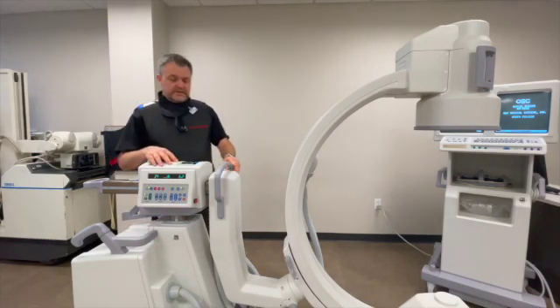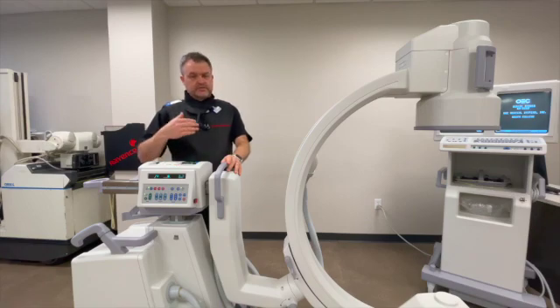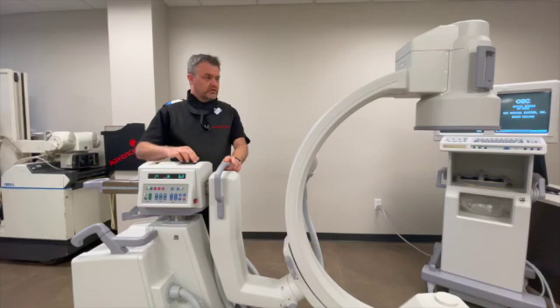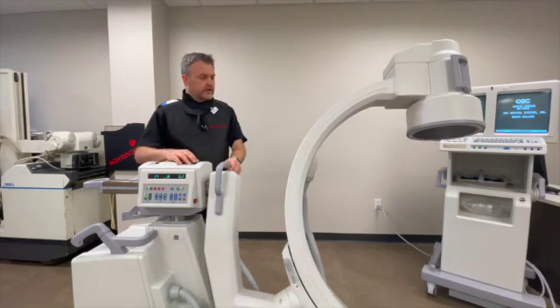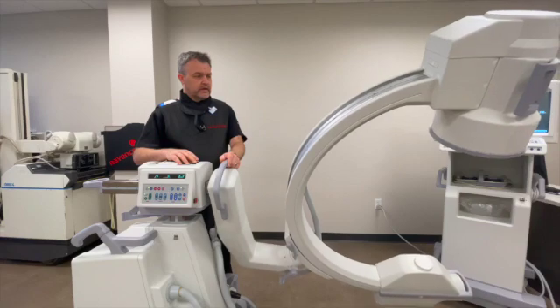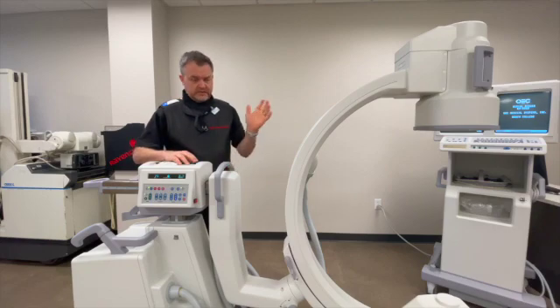This particular model I'm using is a 9600, so it doesn't have manual tilt locks or caudal-cephalic tilt. Sometimes physicians may refer to that as inlet-outlet if you're working with orthopedic surgeons. This machine has two buttons on top which allow it to go cephalic or caudal depending on patient orientation, and being motorized it's a little bit slower. Machines with a manual lock provide more control for getting just the right angle, and once you're competent, allow for faster movement into those positions.